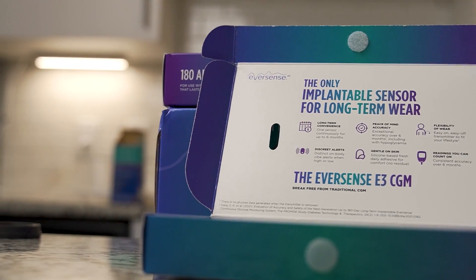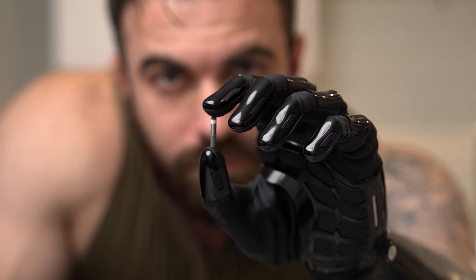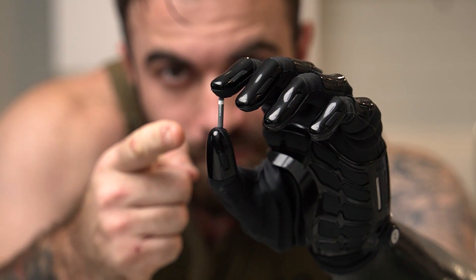This is the one we're talking about today. Big exciting news in the diabetes space — up until now most CGMs need to be replaced every 10 to 14 days. Eversense, with their first ever implantable CGM, was able to do it for 90 days. I was on the Eversense system originally for over a year — five sensors at 90 days at a time. But now recently the FDA approved the 180-day sensor, the E3 CGM by Eversense. That means every 180 days you get one sensor — tiny, literally as small as a penny, if not smaller — put under your skin by a medically trained professional. Two of these a year, and you never have to worry about anything else.